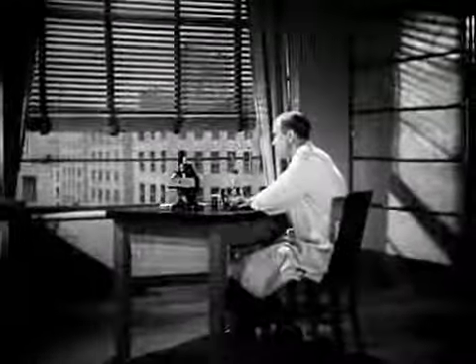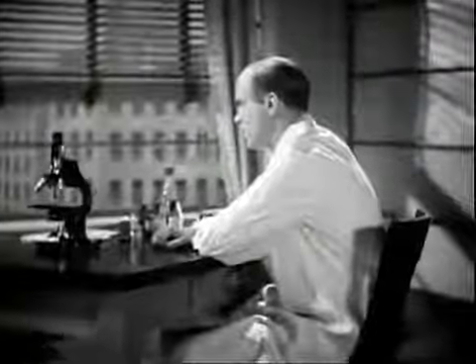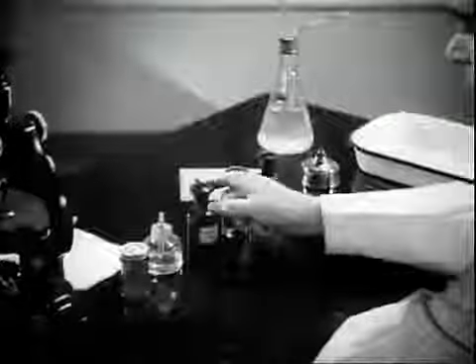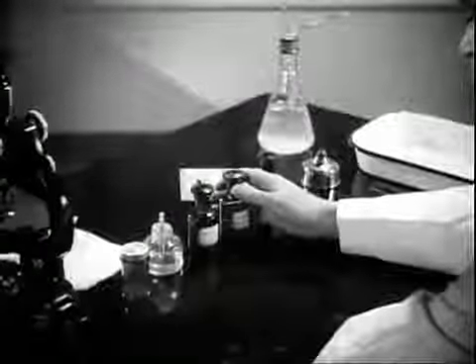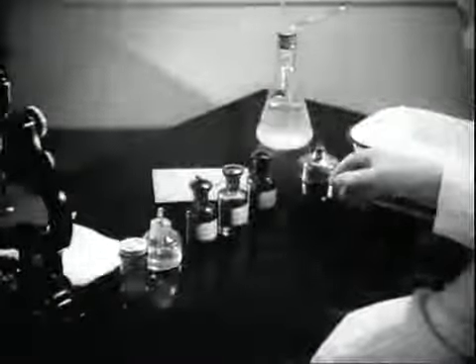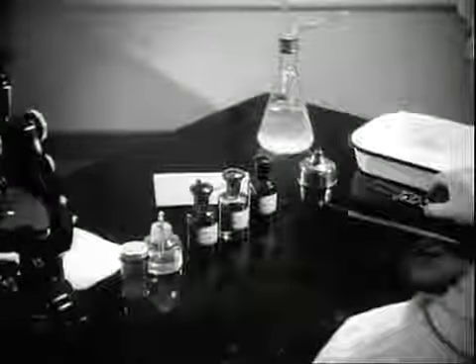To refresh our memories, Dr. Ralph S. Muckenfuss, Director of the Bureau of Laboratories of the New York City Department of Health, will demonstrate a simple technique of sputum examination. Dr. Muckenfuss: The reagents needed to demonstrate tubercle bacilli in sputum are carbofuchsin, acid alcohol, and alkaline methylene blue. We need also an alcohol lamp, a platinum loop, and a glass slide.